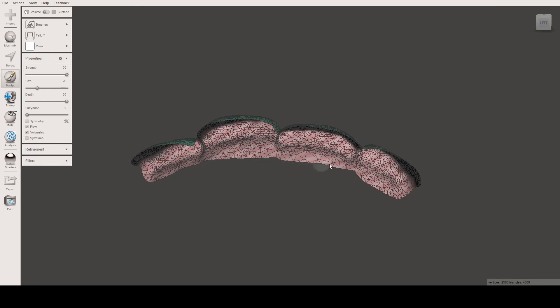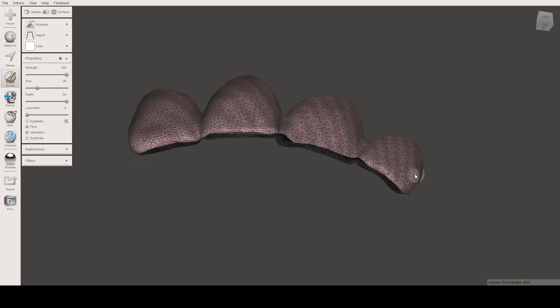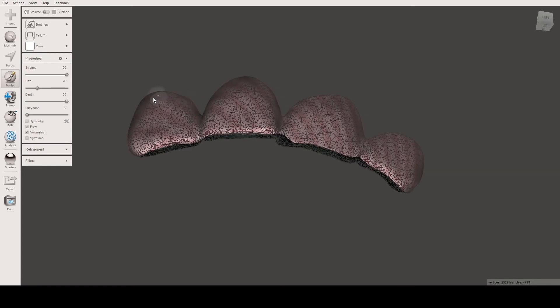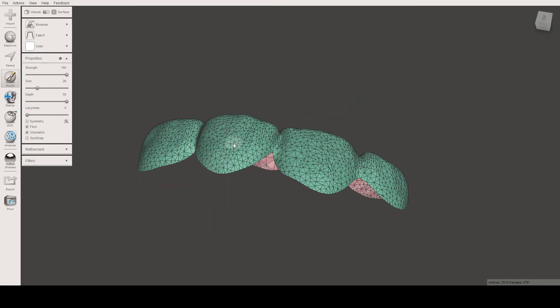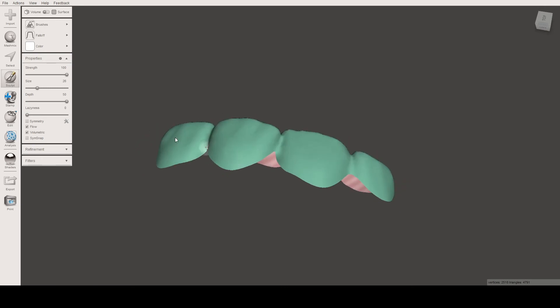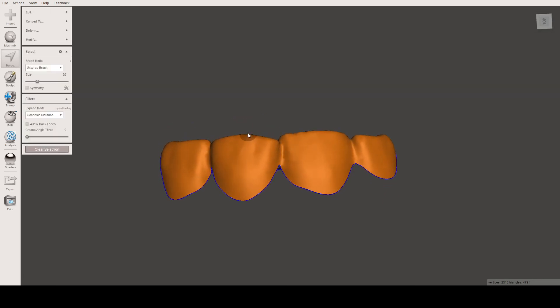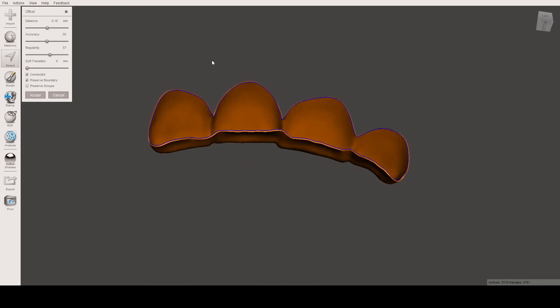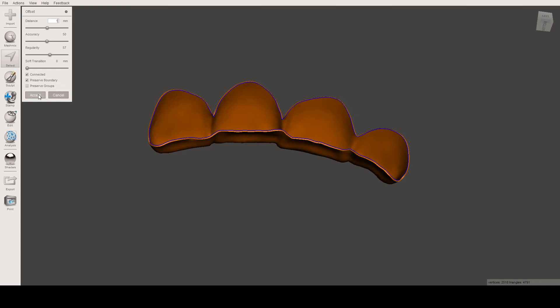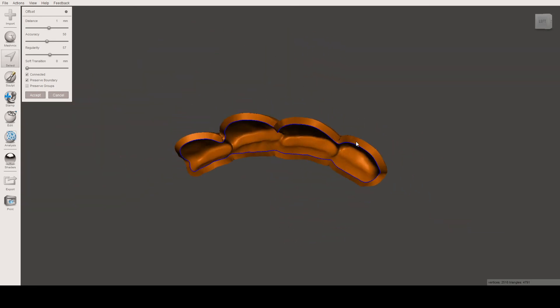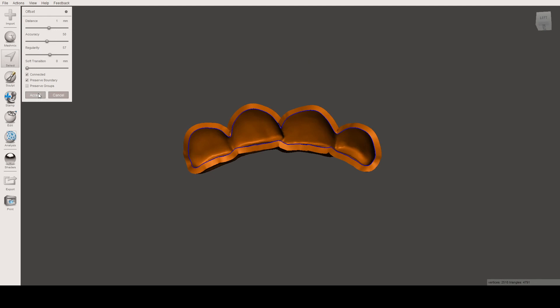Going all around the borders will help when we create the offset or thickness, making it as smooth as possible. Let's try this: double-click again, press W to exit wireframe, press S to select, double-click to select everything, and press Ctrl+D. As you can see, it's very smooth now. We set it to one millimeter, with Connected and Preserve Boundary options enabled, click Accept, and it's now very smooth and regular.